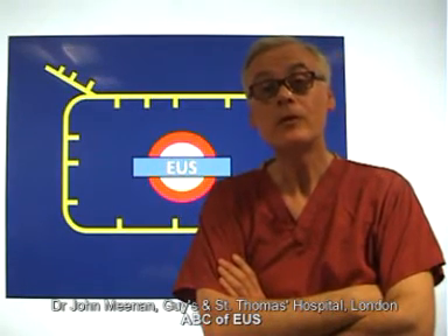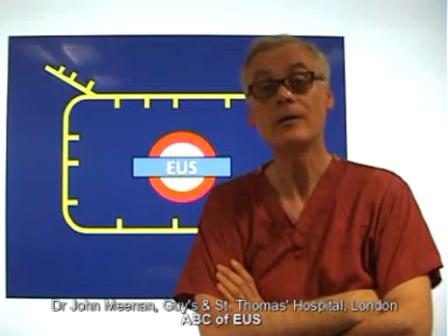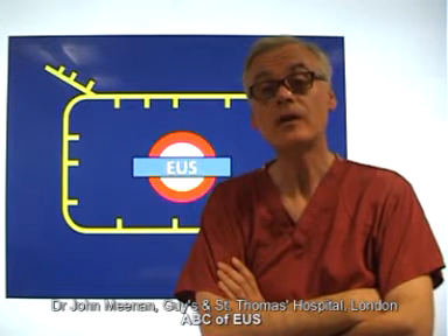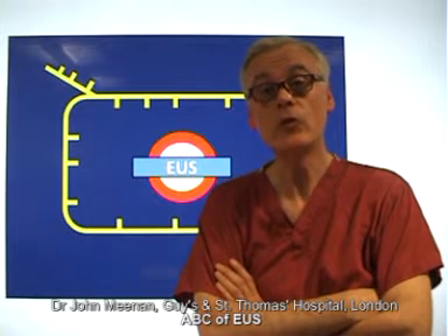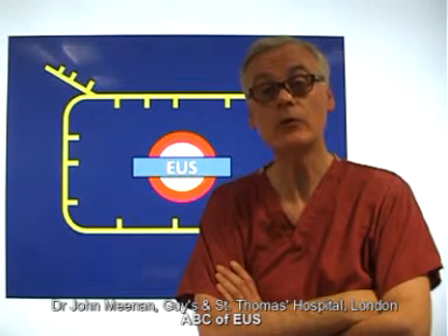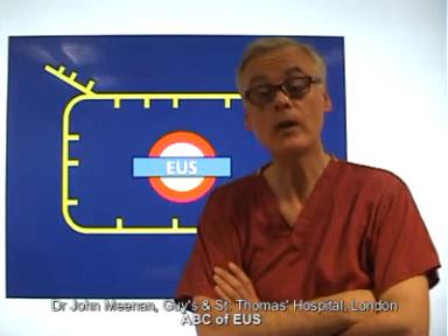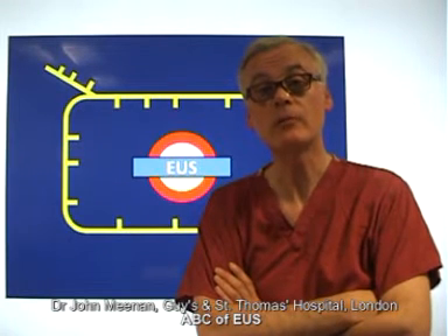Charles Vu, Sabina Di Martino and myself have all gone through the pain of learning EUS — sometimes with a good teacher, sometimes trying to figure things out ourselves. We really think that taking a stations approach to performing EUS, explaining the anatomy, what we see on the screen, and putting the two together through the use of cartoons, slides, video recordings, and also giving the background literature, really does enhance the learning experience.